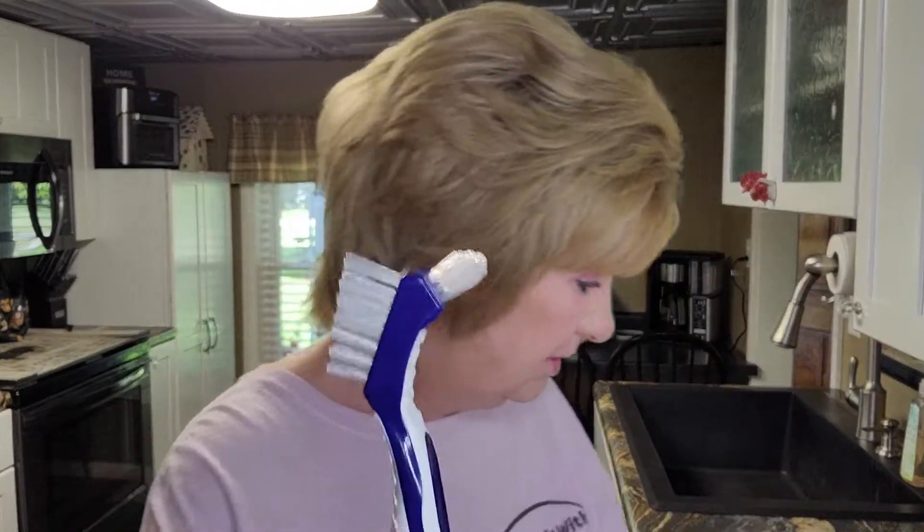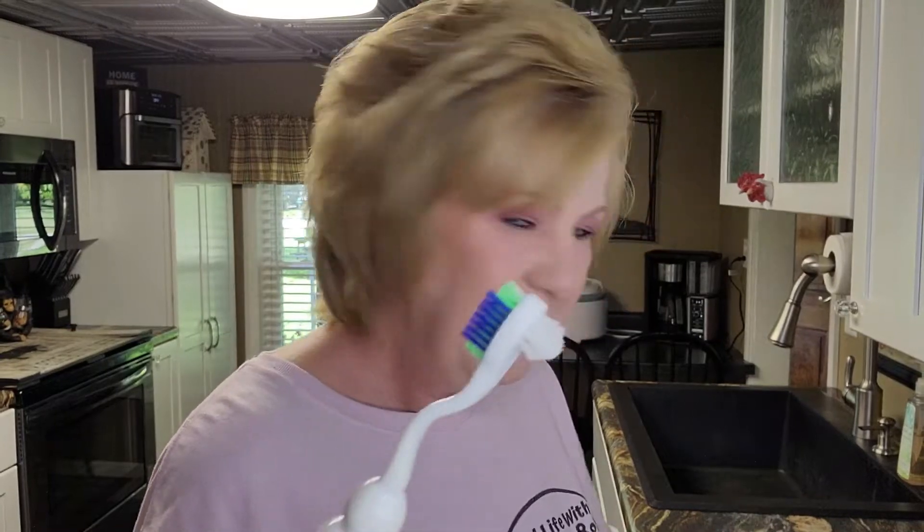I'm a bit confused at this point, but here's my final verdict: the Walmart Equate brand — I like how it gets in there really well, whereas the others don't get in as good. Equate, Walmart brand for the win on the inside of the denture. The outside? There's nothing soft about the Fresh and Bright brush — I'd probably buy the set and throw that one away. Dr. B I like in my mouth; it makes me feel normal brushing my teeth. I might keep using it on the outer denture.